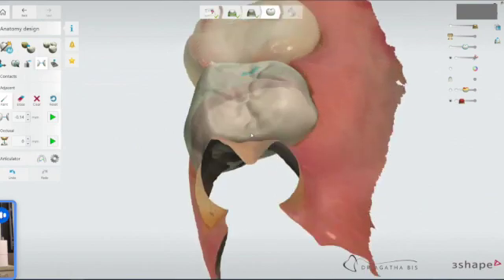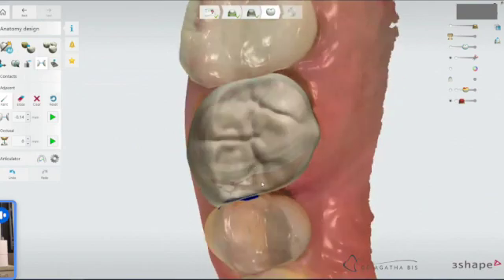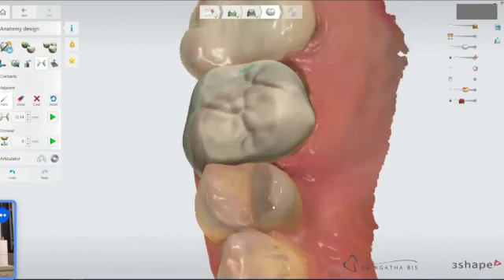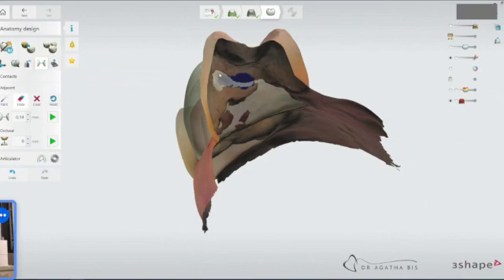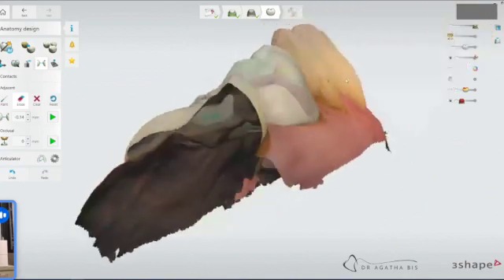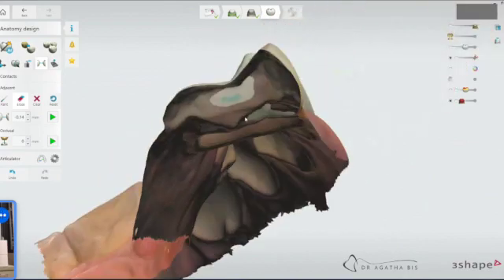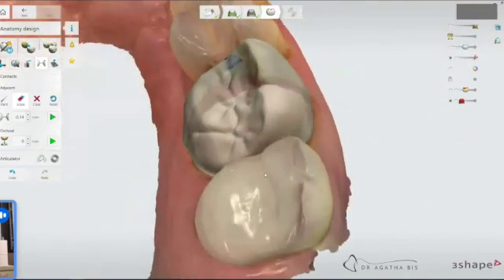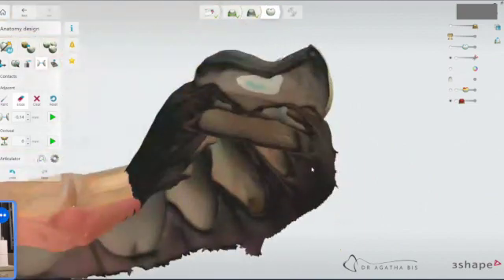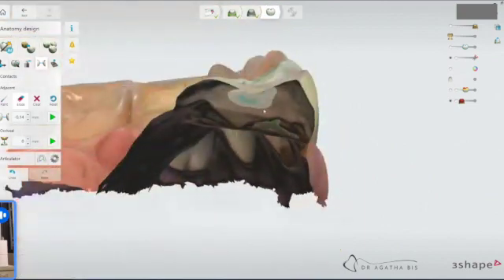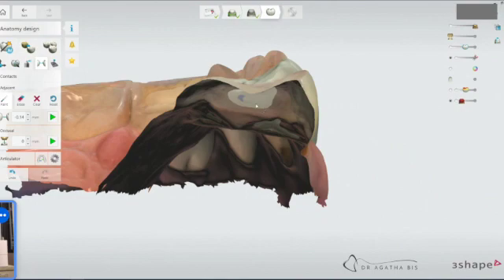Flip it over. I kind of want it right there. So I'm just going to broaden it a bit. I'm going to erase this part. You can go back to erase and then you can erase this section. Flip to the other side. Same thing. I want it kind of in between the two teeth. So we're going to paint a bit of a broader contact.